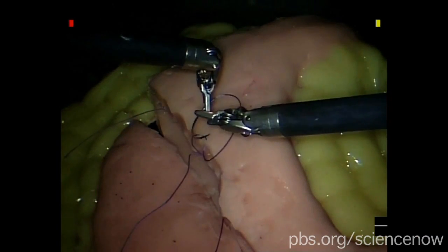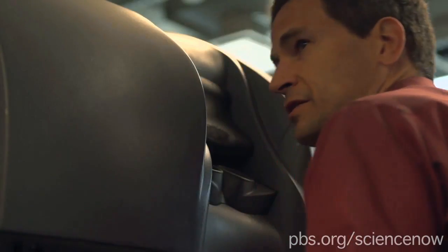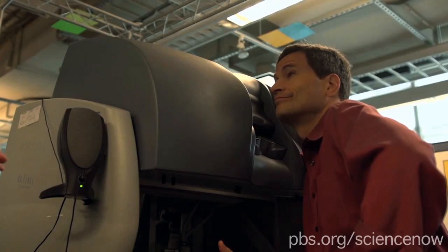Look at this. I just gave somebody a gastric bypass. I could almost do this blind. Please don't do it blind. I think you should still keep your eyes open. Surgery's complete. This patient's fixed. Good job. Do you want to see how it works? Yeah. Great.